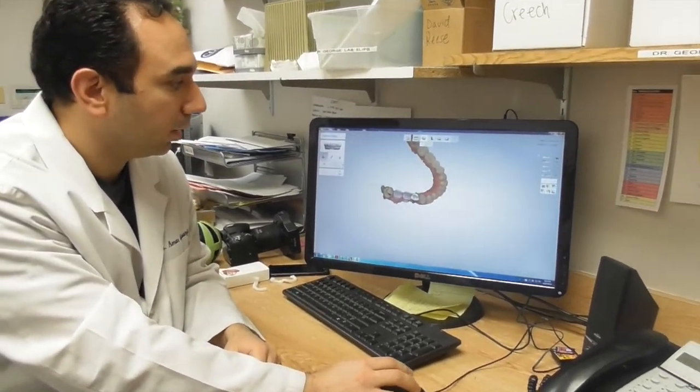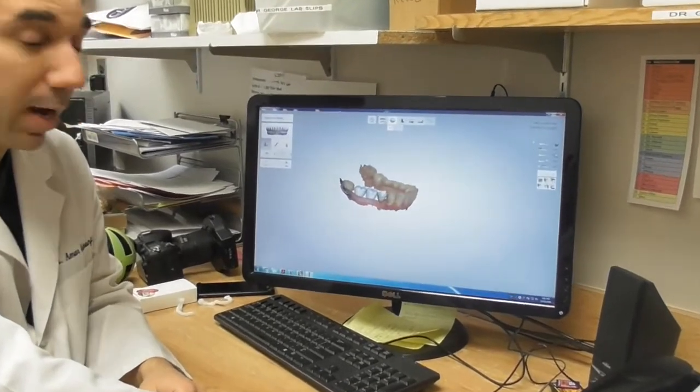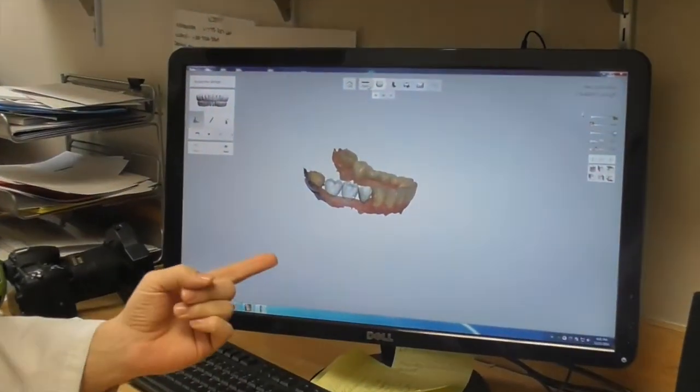This is a case where we're doing three implants, and the first step is to design the crowns that are going to go into the empty space.